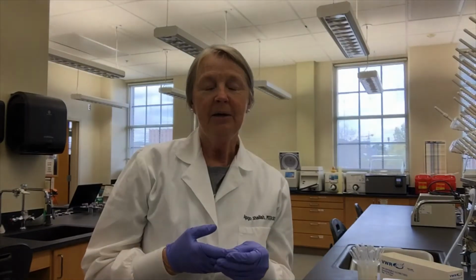So today my plan is to create a lab that you can watch online, and I am going to run the test and you're going to record the results and come up with the interpretation. So hopefully I can do this in little short segments and upload it tomorrow, and you can watch it without having to do all the lag periods.